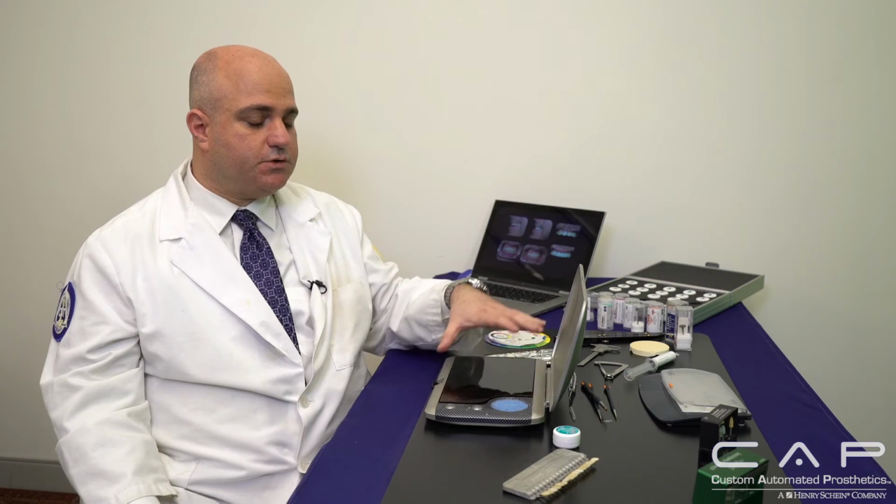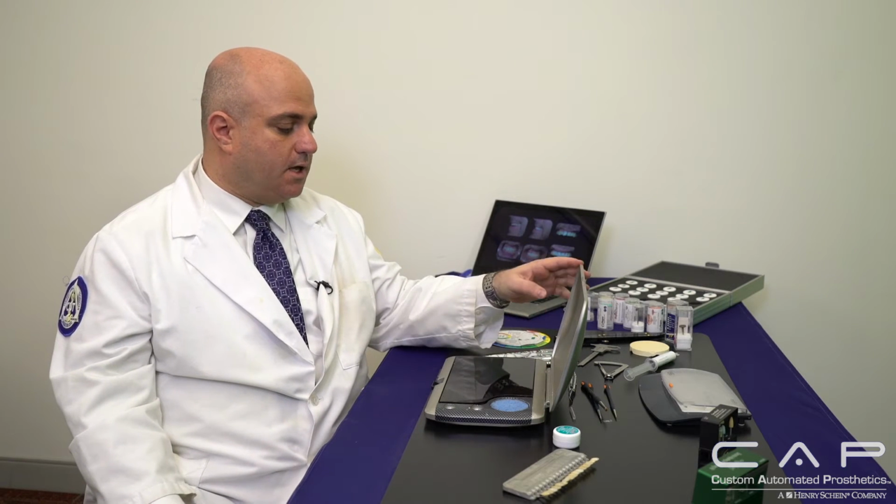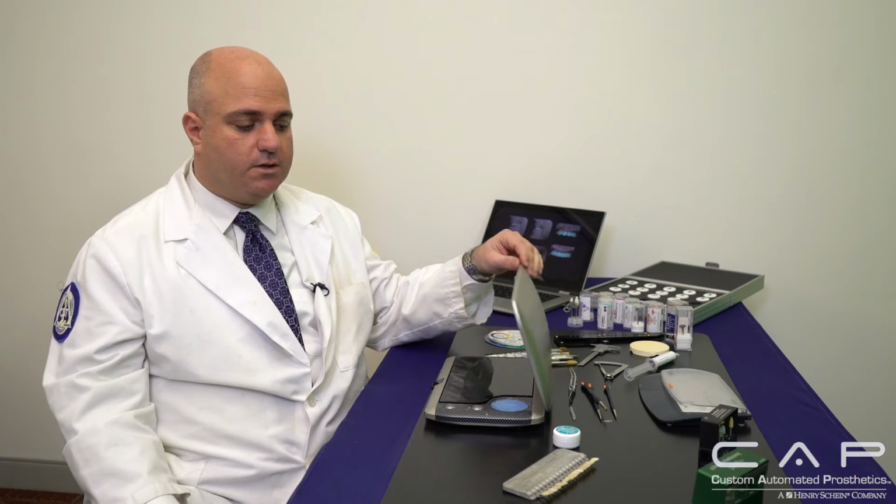I typically, when I layer, don't use only one powder. I certainly use the same principles as I do with staining, where I contrast with translucency and enamel and any transparency in there. The idea is to really be able to get a vital tooth to look as natural as possible in the oral environment. So this tray really helps me a lot, and I use it regularly.